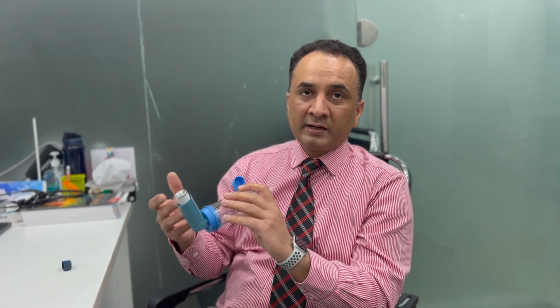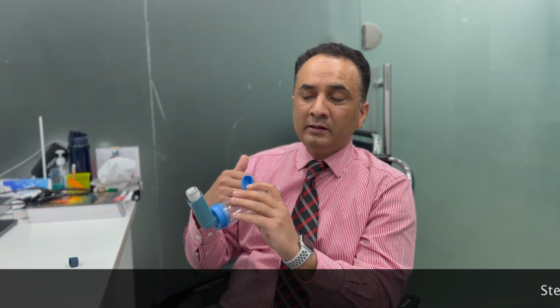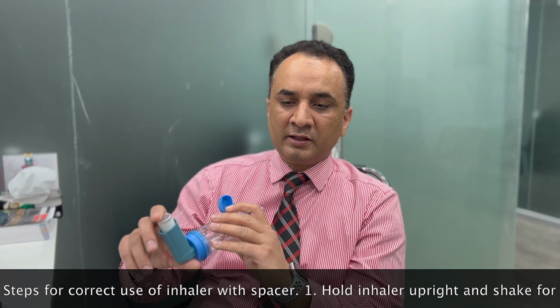So I have taken one puff and held my breath for about 5 seconds or more. This is one way of using a spacer with an MDI. There's another method of using it, especially for people who have poor technique or have advanced disease. In that case, I prefer what we call the tidal volume method, in which instead of taking one big breath and holding that in, you take multiple breaths, at least 4 to 5 for each spray, and you continue to breathe in and out of the spacer, just like this.